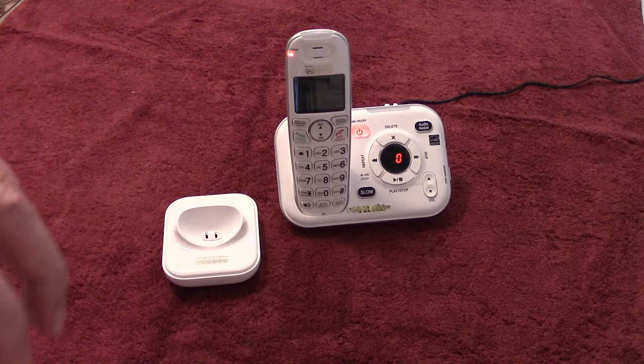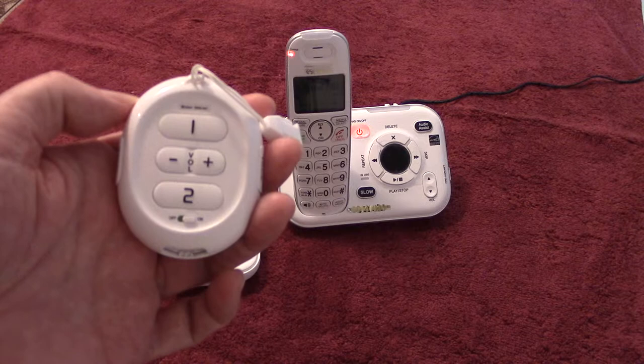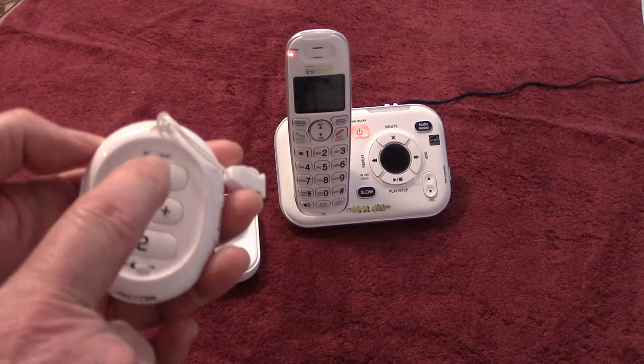Now at this point we're ready to use emergency button number one. If it was hooked up to a landline, and you were wearing this pendant and wished to make a phone call to 995, you could do so by just pushing button number one.